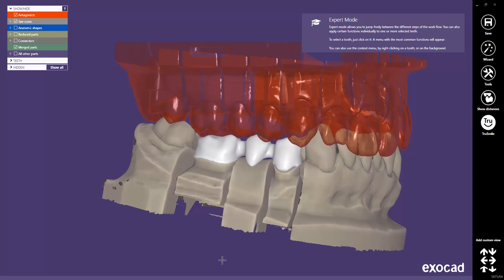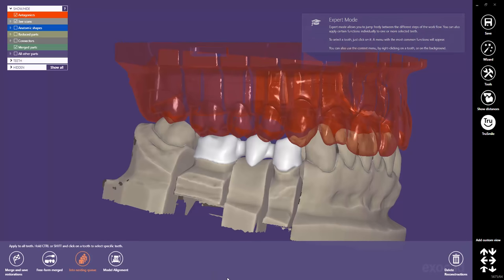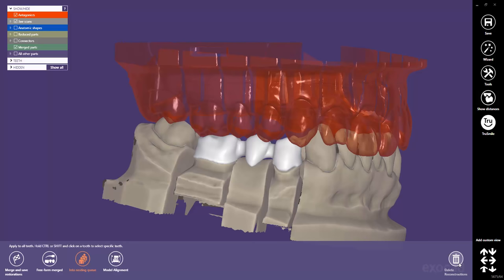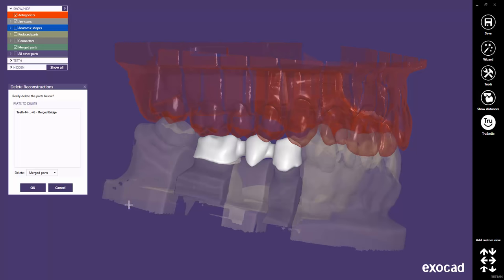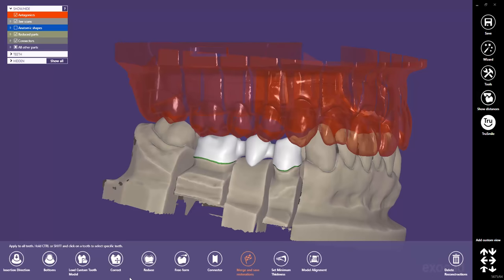Note: if a scene has once been saved and closed, you have to delete the merged parts in the Delete Reconstructions window. Don't worry — this action will not delete your design, except for modifications you have done in the Freeform Merged Parts step. Now all the work steps are available again.